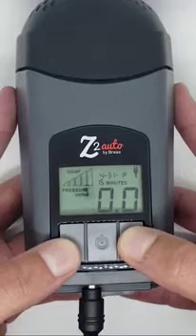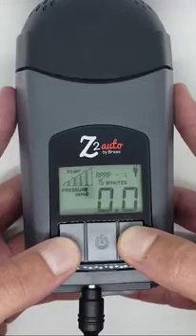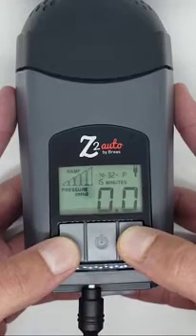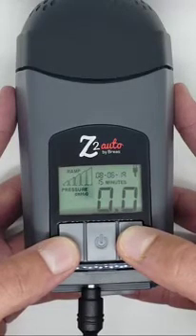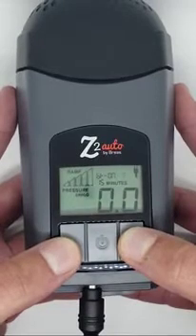If you add a ramp start time and pressure on a fixed pressure device or in CPAP mode, the device will start at the ramp pressure and the pressure will increase over the set ramp time to the fixed treatment pressure. If you add a ramp start time and pressure in auto mode, the device will start at the ramp pressure and increase in pressure over the set ramp time to the low treatment pressure.